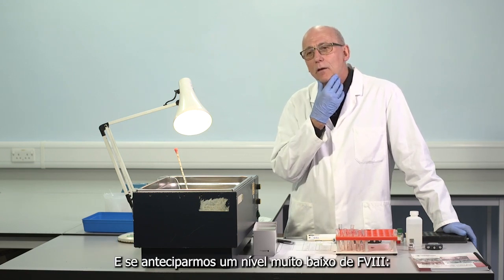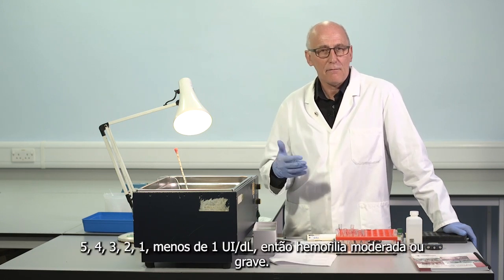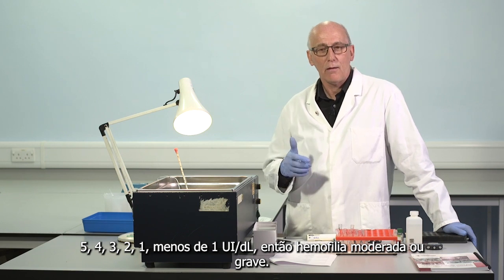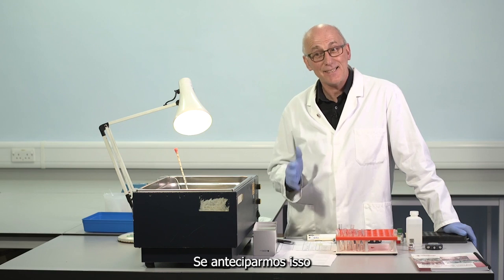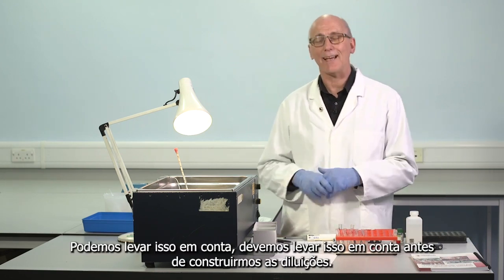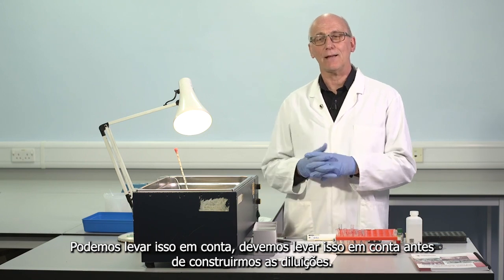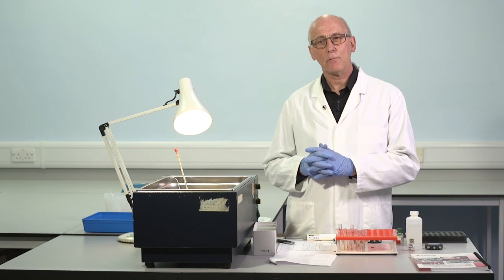And if we anticipate a very low level of factor VIII, 5, 4, 3, 2, 1, less than 1 international units per deciliter, so moderate or severe haemophilia, if we anticipate that before we start the assay, we can take that into account. We should take that into account before we construct the dilutions. And there's 2 things we can do, 2 things we should do.